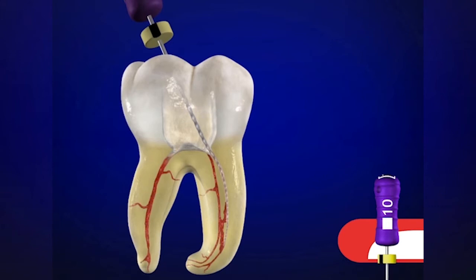Let's look at some of the concepts we've just talked about. When we slide an instrument into a pulp chamber filled with a viscous chelator such as ProLube, Glide, or RC Prep, the instrument will slide into the orifice — and oftentimes down into the body of the canal many millimeters — oftentimes to mid-root, or in some instances to the junction of the middle and apical one-third.